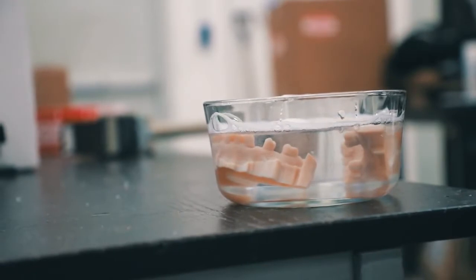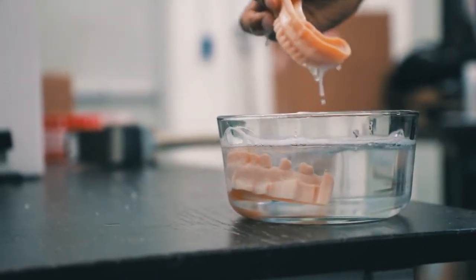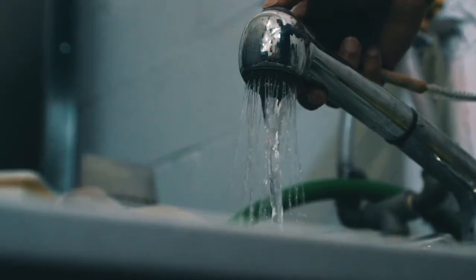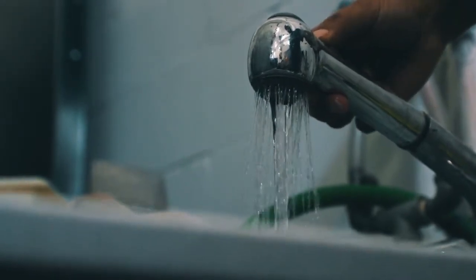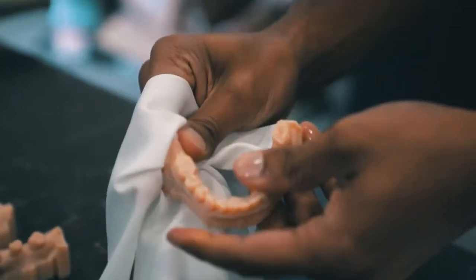For an improved surface finish and to eliminate any small residue left on the model, you may want to consider dipping the models in 2% sodium hydroxide diluted in water for about 5 to 10 minutes. A quick rinse or second water jet cleaning is recommended. Wipe the water from the model using a dry cloth or towel and your models are ready to go.